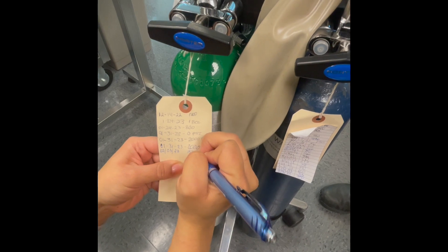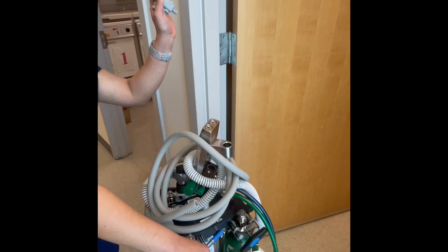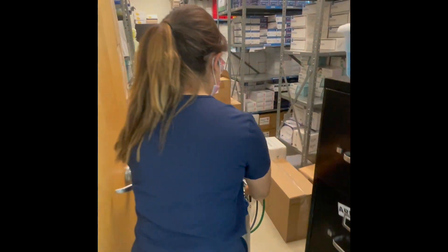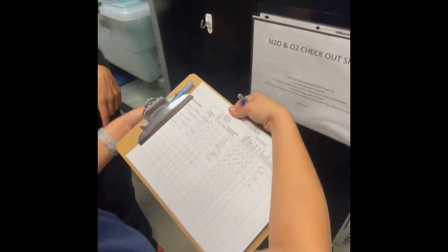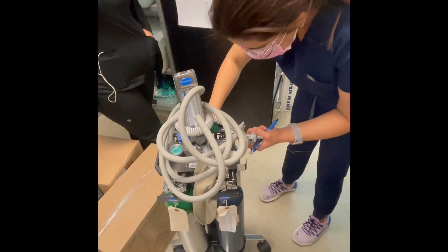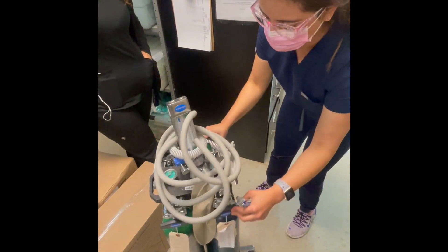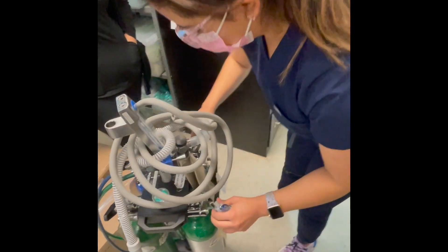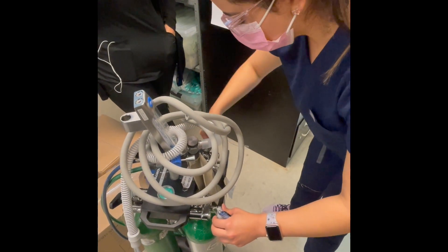Now you're ready to check the unit back in. Once your unit is properly wiped down, carefully roll the unit back to the storage room. You must go through the checkout list with a faculty member in order to be signed off. Here, you will show the faculty member the remaining gas levels in each tank. Next, tightly close each valve to prevent any leakage while in storage. If any of your tanks are empty, it is your responsibility to change them out so they are ready to go for the next person.